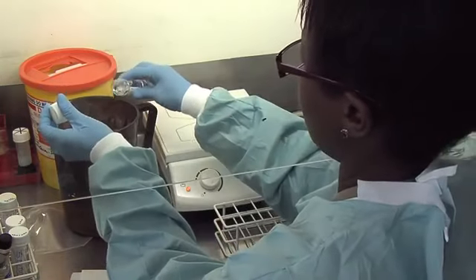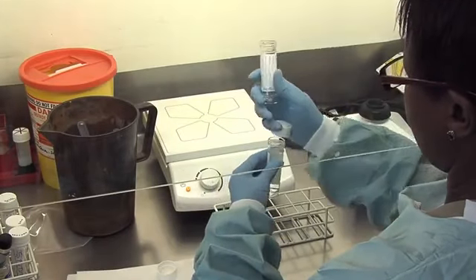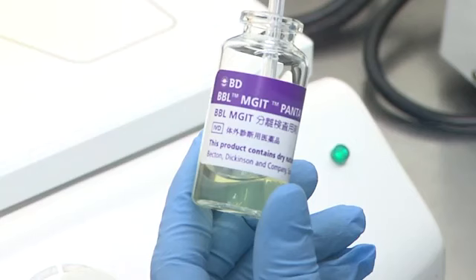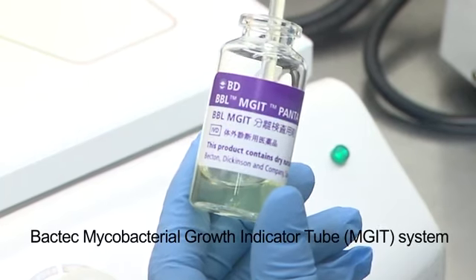After centrifugation, the supernatant is decanted and the concentrated deposit is resuspended in phosphate buffer to neutralize the sodium hydroxide, and it is vortexed and re-centrifuged. The final buffered deposit is inoculated into a liquid culture media and a solid slope culture media. The liquid culture media is a commercial-based system for mycobacterial culture. It is known as the BACTEC Mycobacterial Growth Indicator Tube System, with the acronym MGIT or MIDGIT.